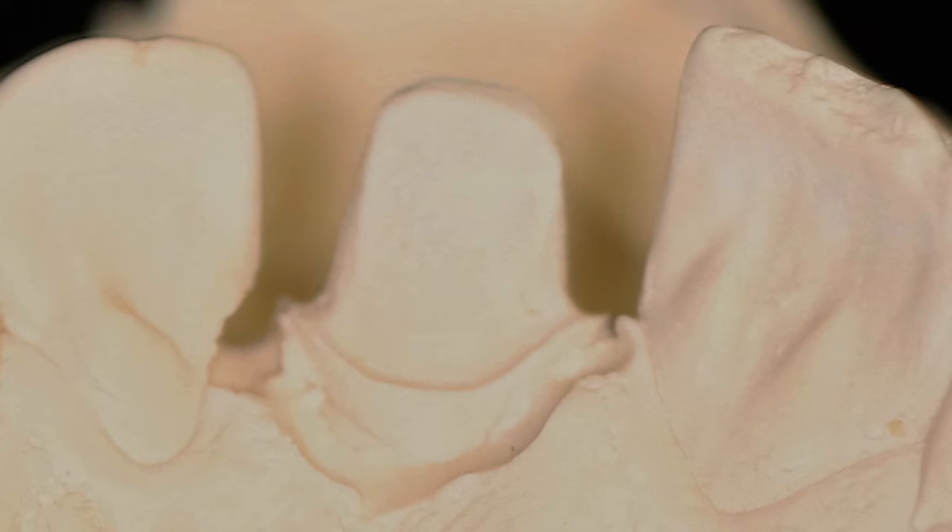It's beautiful. You haven't put a burr in there, no blade — everything's just perfectly clear. And it's very accurate, too. It's just a great way to marginate without, well, marginating. I hope you enjoyed this little trick.